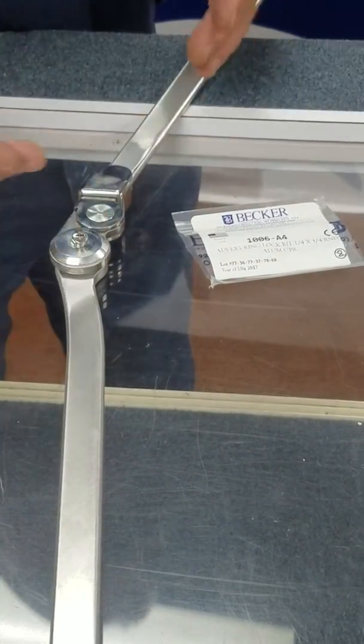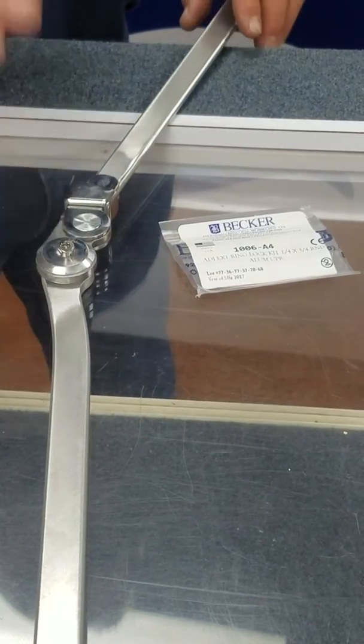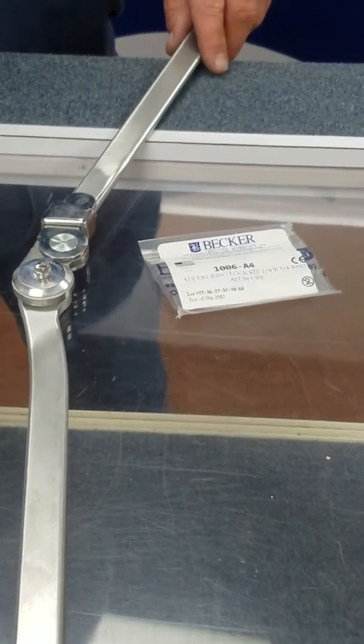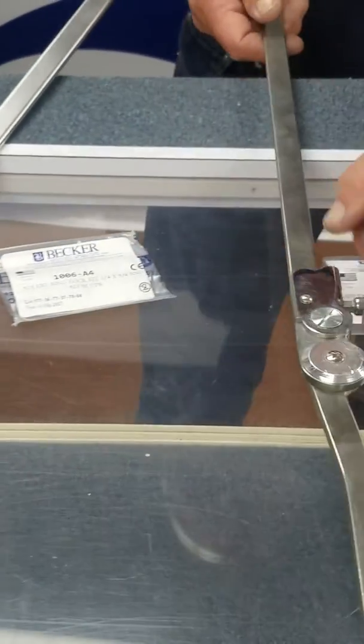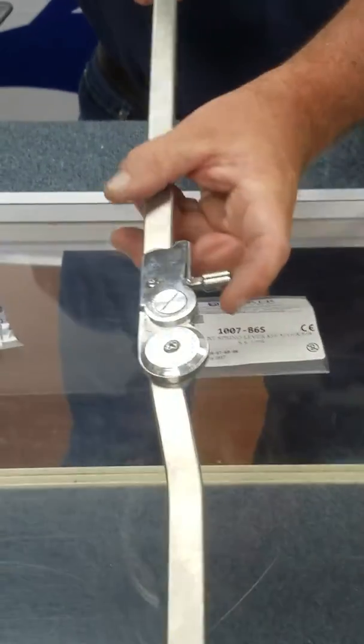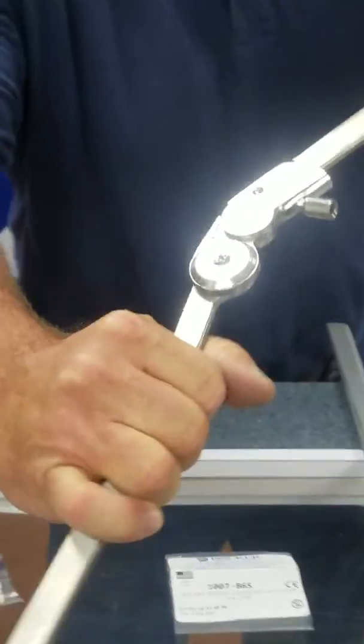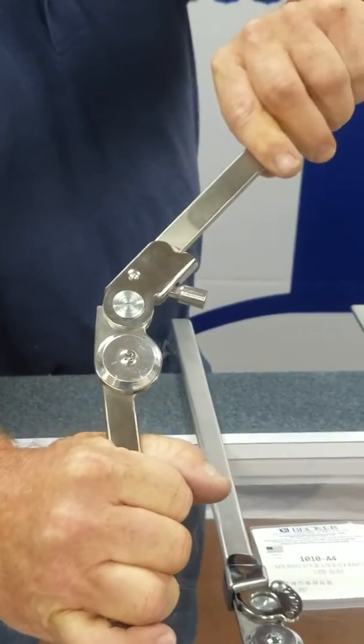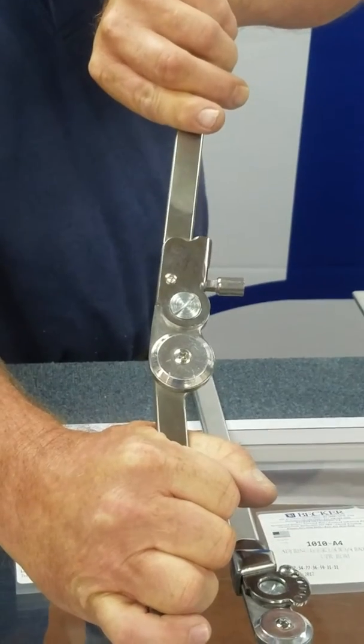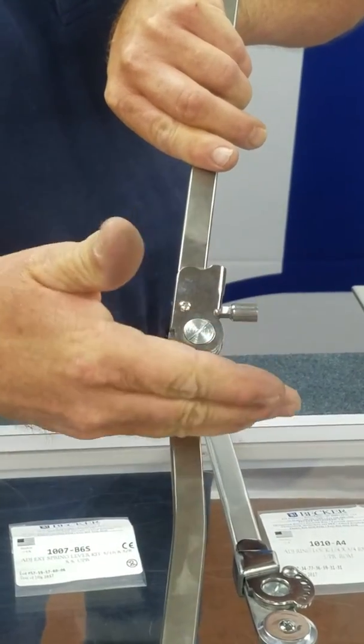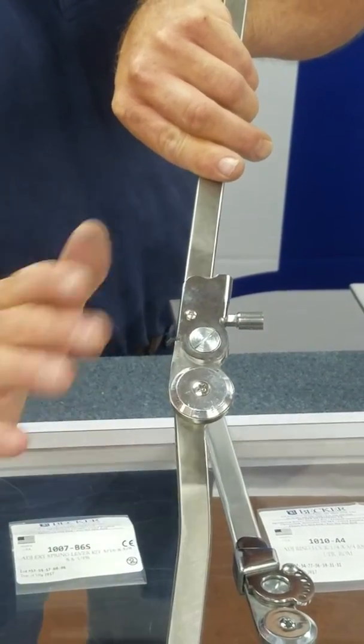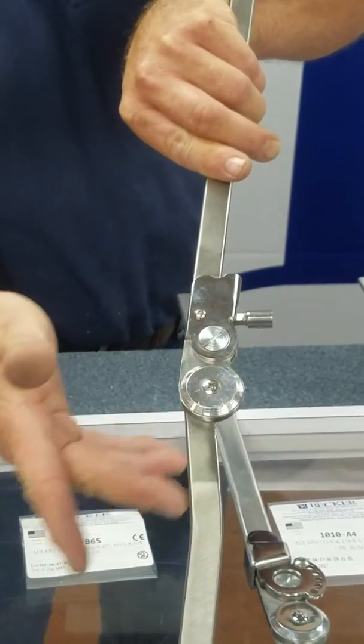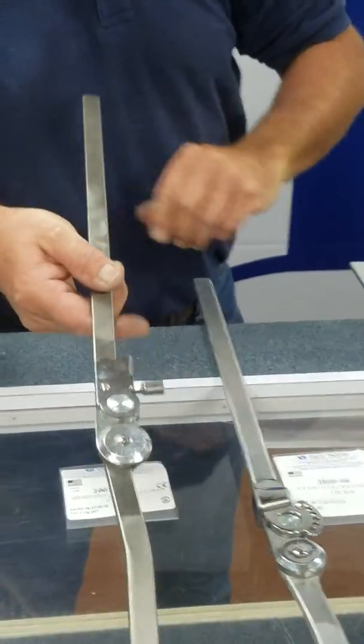So this is a drop lock—it's gravity-operated. The 1007 operates in the same fashion, but this is an automatic lever lock. When the joint reaches full extension, it locks. As you change the flexion, you're changing the full range of motion, but it'll still lock at full extension.